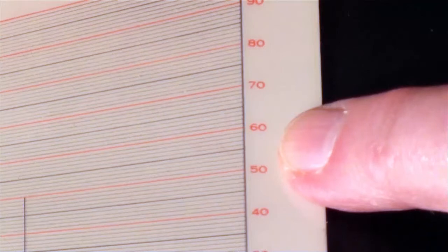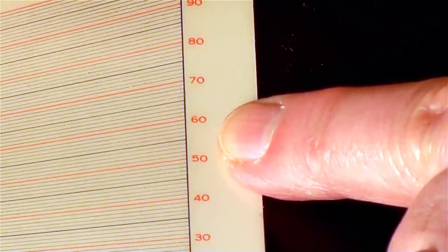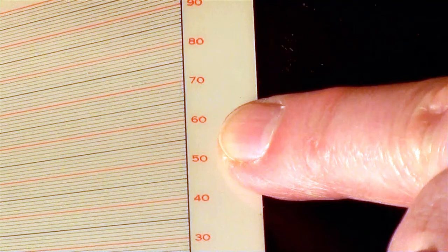In this case, it's 55. So that means this sample of cow blood was 55%. That's the hematocrit reading.